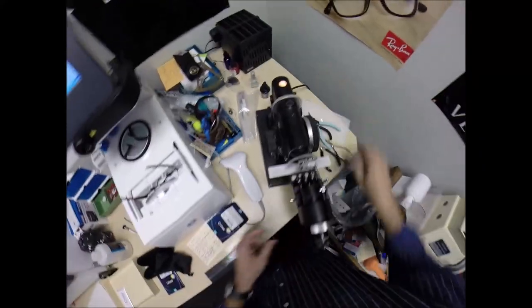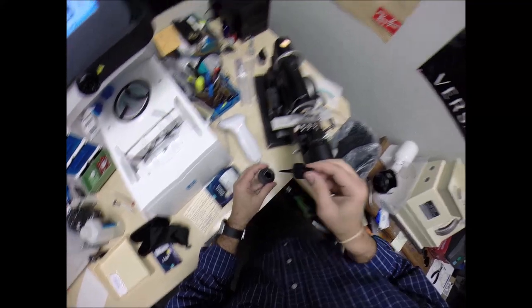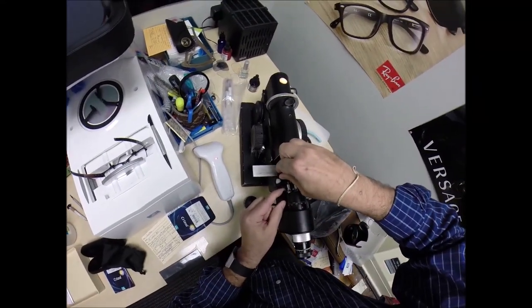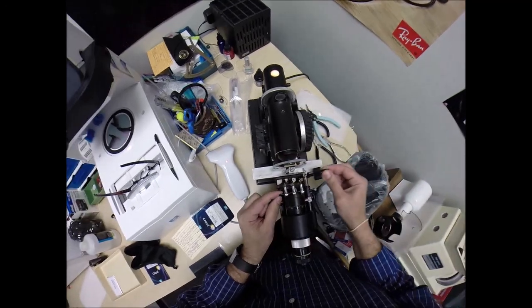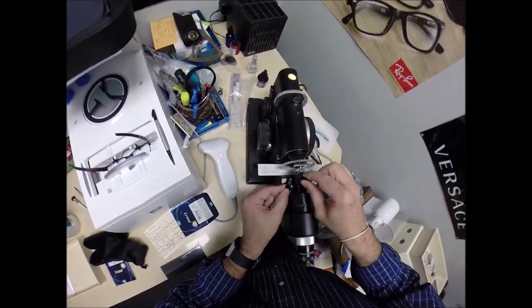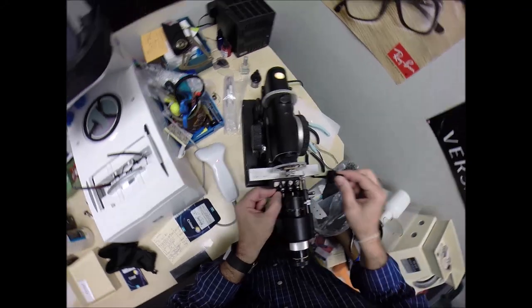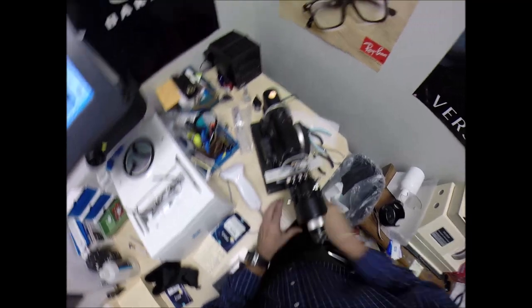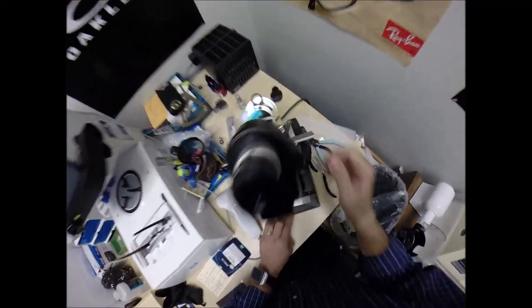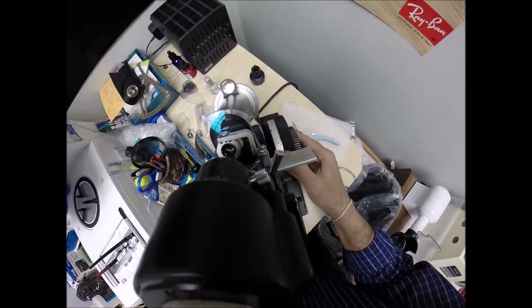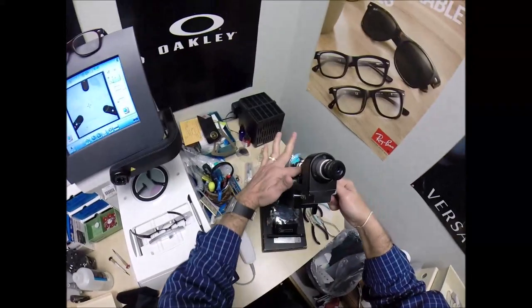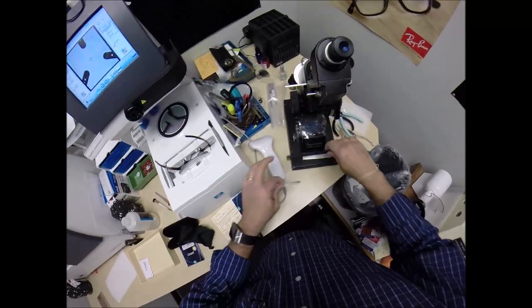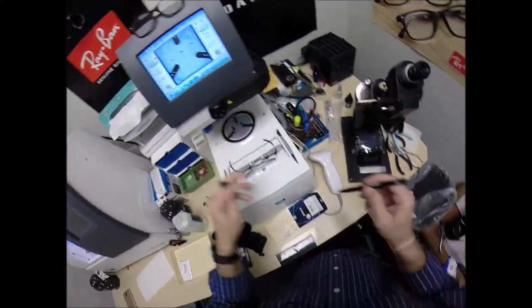And I'm going to put three dots on your lenses, which of course I need more ink. More ink, the never-ending story of my life. There is a pestilence upon the land. There is never enough ink. Never. So now I can put three dots on there. Let's make sure that everything is where it's supposed to be. And it is. Finally, three dots. And this is the right lens.